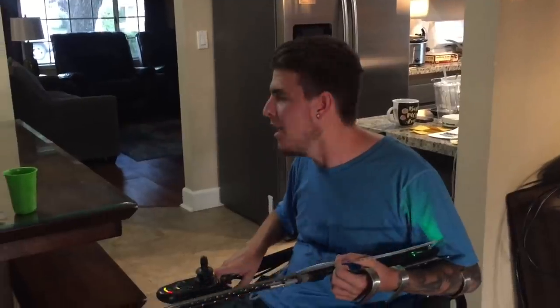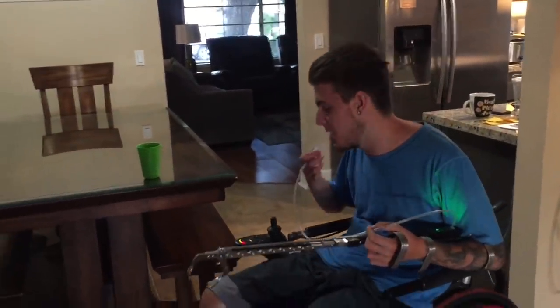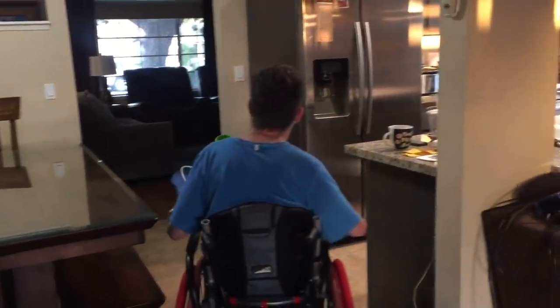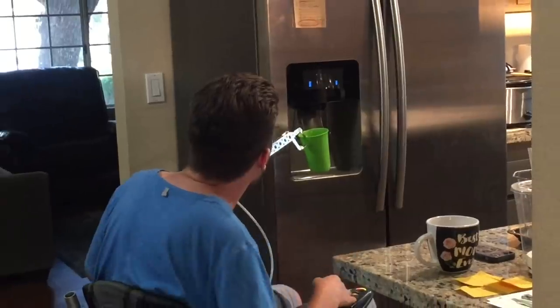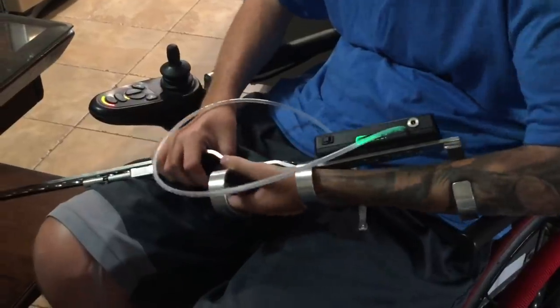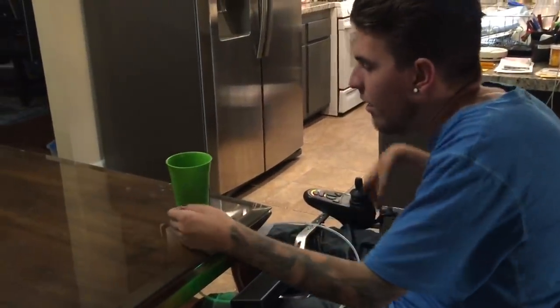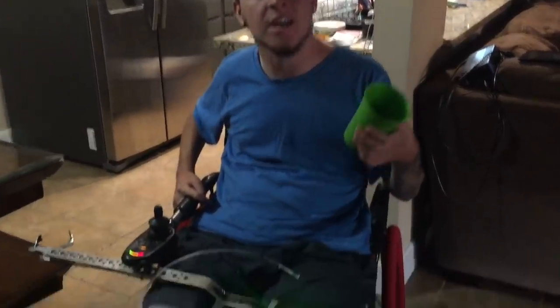So I'm going to pretend I am home alone right now and I have a cup right here. I'm going to try and grab it and then put water in it from my fridge. Let's see how this works — I've never done this before. That was super cool for me to do. I've never done anything like that before on my own, and this reacher allowed me to get water independently. There'll be a couple more clips of things that I'm able to do with this.